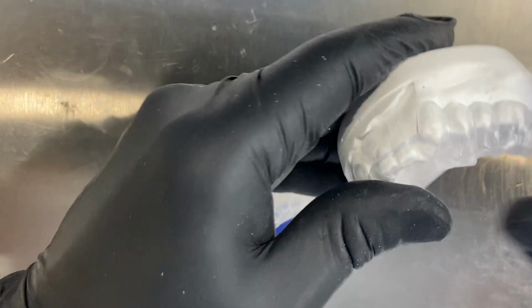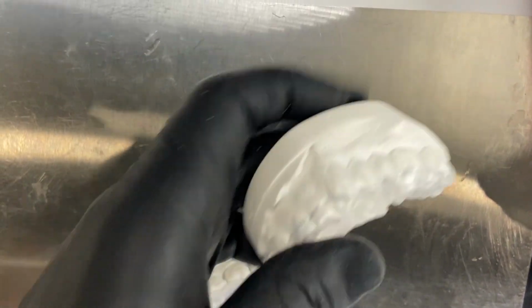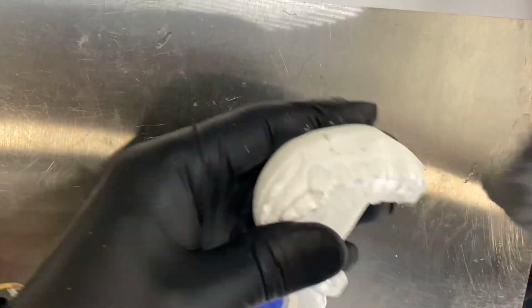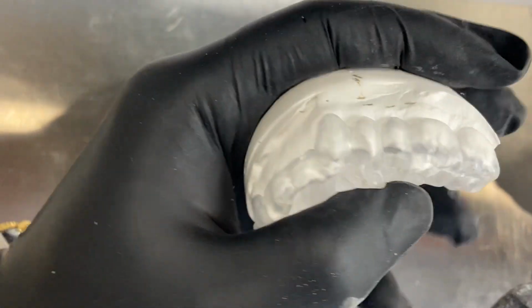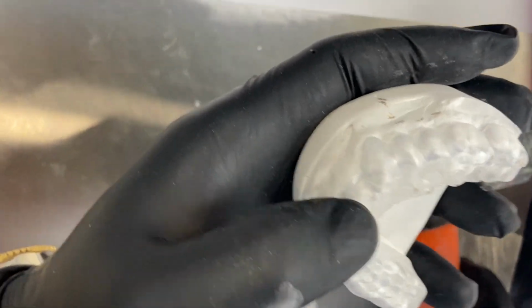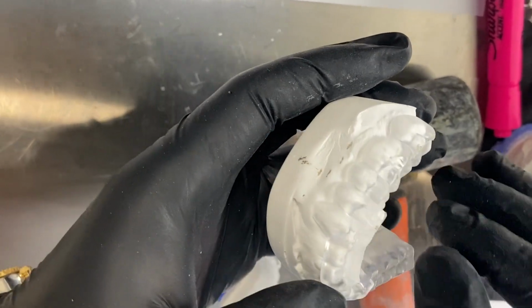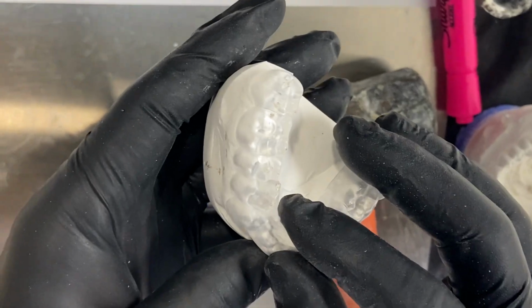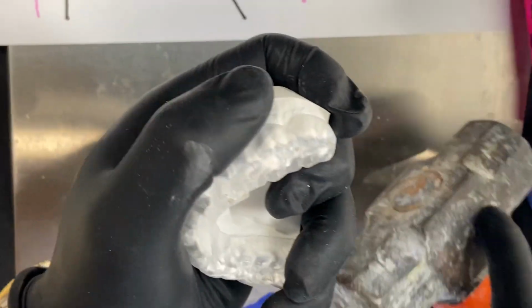First of all, this is just a regular acrylic. Part of what I want to show is that when the orthotics are in the mouth, they cannot break. You're not going to have that strength of occlusion, and this is a regular acrylic one. You're not going to break the orthotic if it is installed in the patient's mouth. And sometimes patients come with the excuse that they were biting just a cookie and the orthotic broke. But as you see, the orthotics cannot break in the mouth.